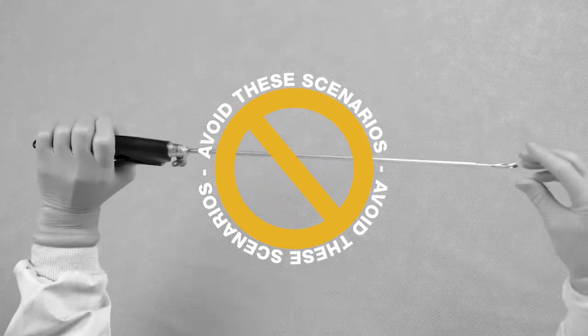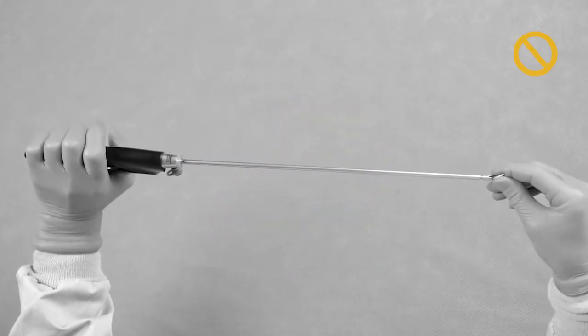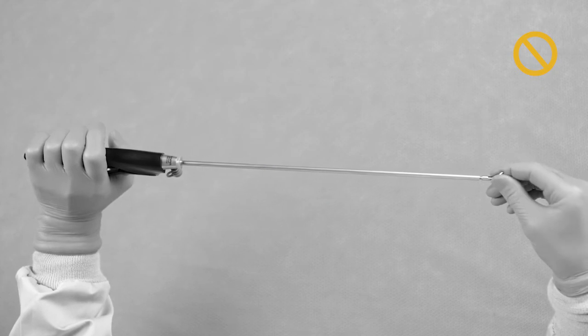Avoid holding the bottom lever of the needle holder handle while attempting to screw the insert into place.